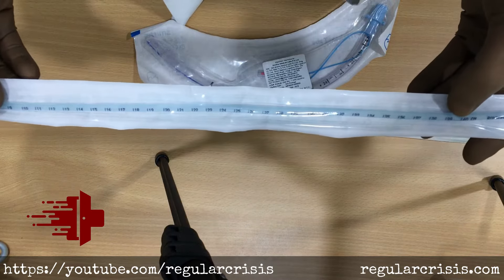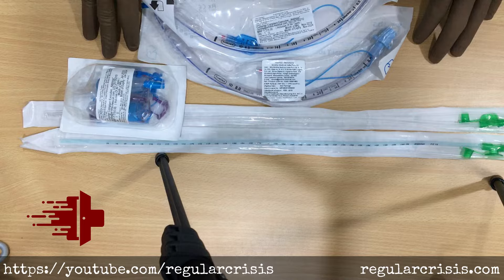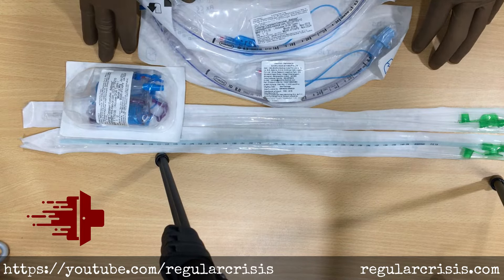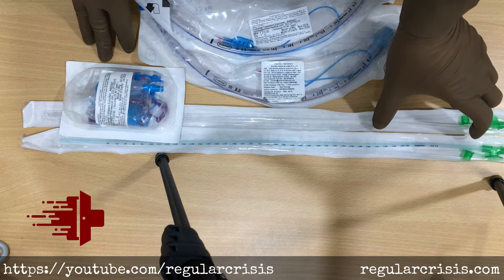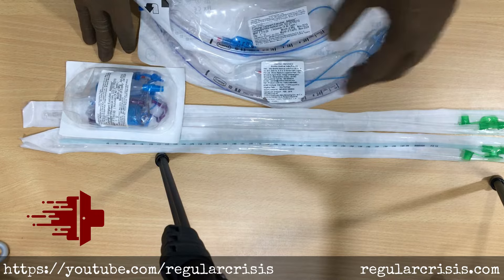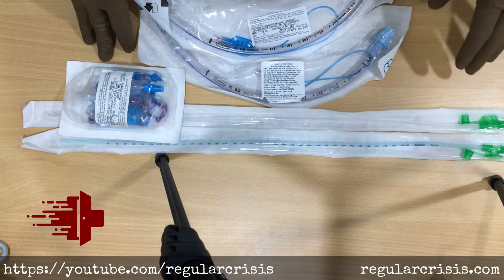So now you understand why we don't insert the full suction catheter into the endotracheal tube. Always leave approximately 8 to 10 centimeters of the catheter outside the endotracheal tube. For tracheostomy, the effective insertion length decreases to approximately 15 to 20 centimeters.